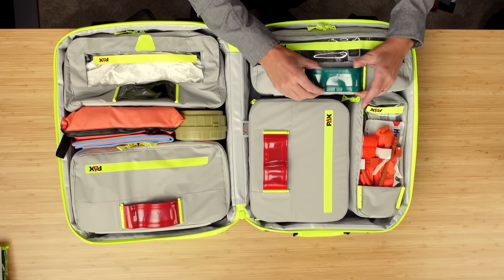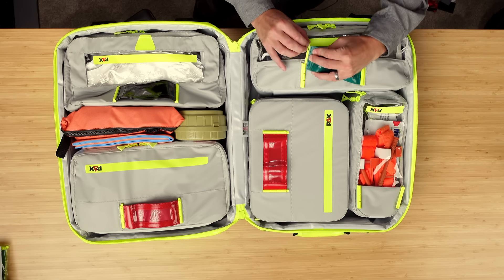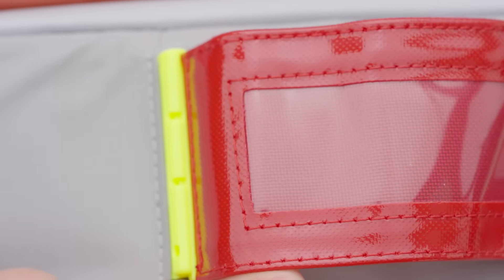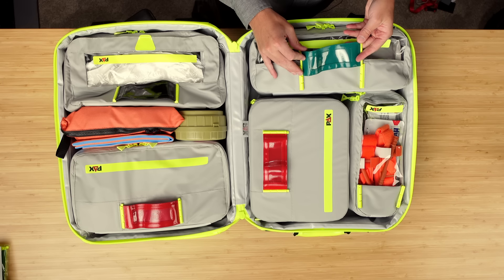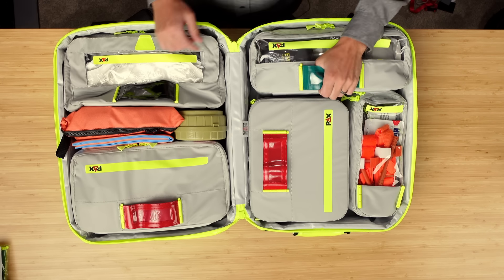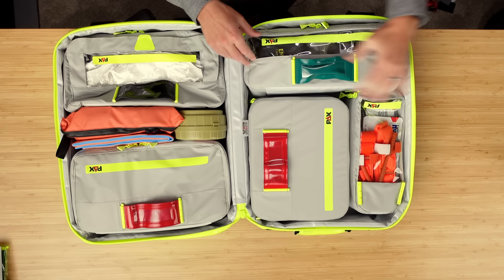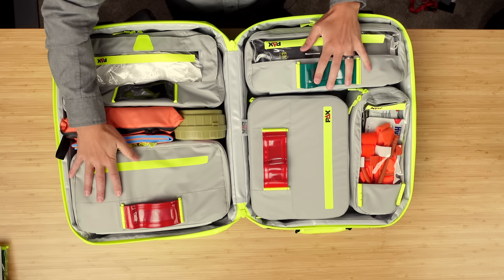In each of these modules you'll notice it's got these little flags on it. This is the marking thing they've come up with — you can pull these off really easily, throw in a little slip of paper, and label what the bag itself is. They also double as handles. We really want to be able to take these and throw them to other people. So let's talk about the individual modules I have in here.